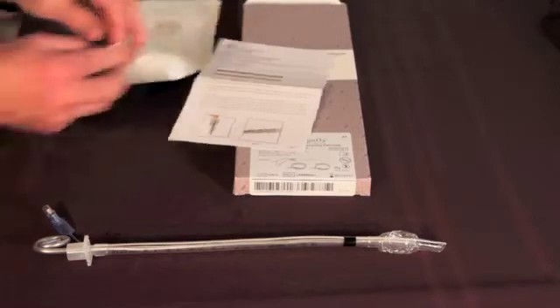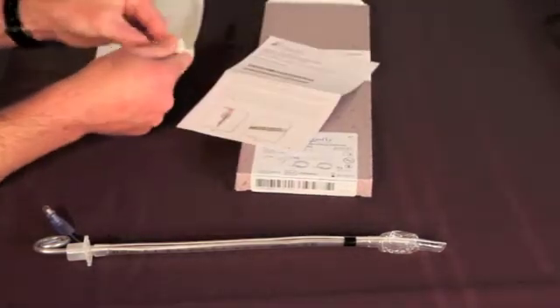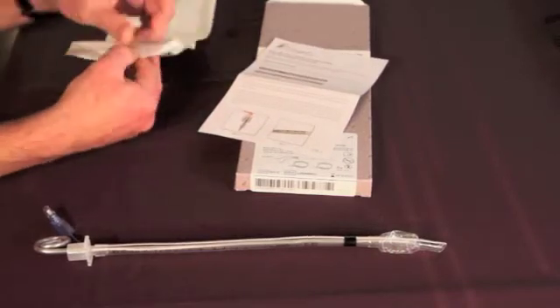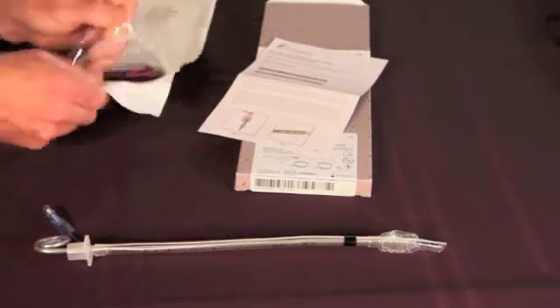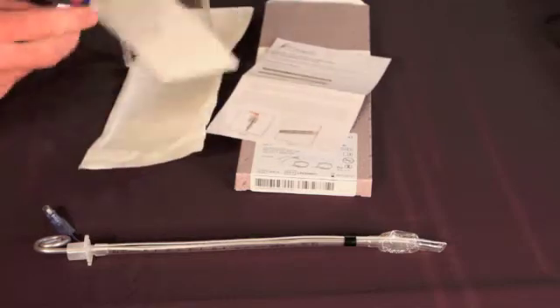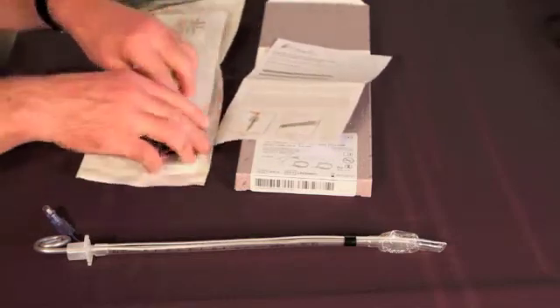Now moving over to my laryngeal electrode, I'll remove it from the peel pouch. Keep in mind that this product is packaged sterile and proper care should be taken to maintain cleanliness when working with the product.